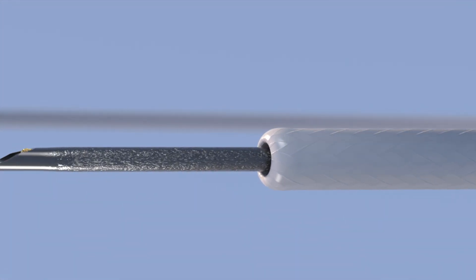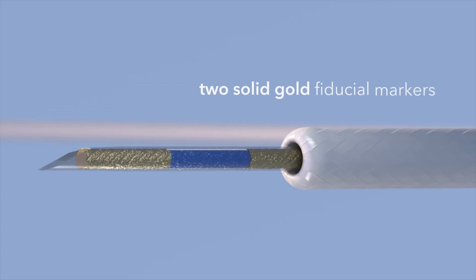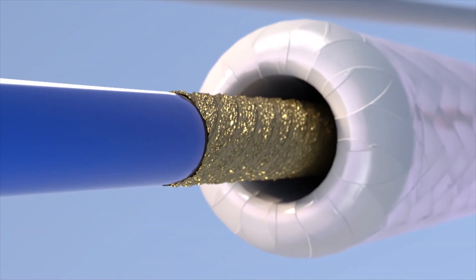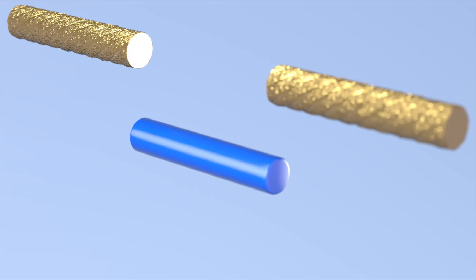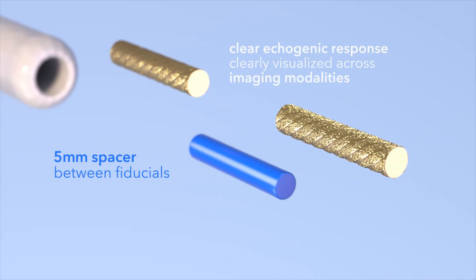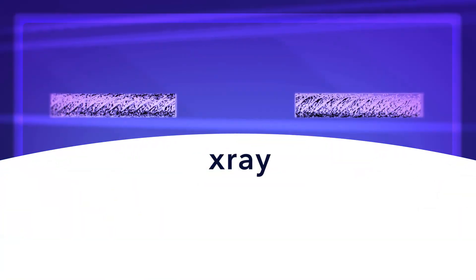The Beacon FNF Needle is preloaded with two solid gold fiducial markers, which eliminates the need for manual fiducial loading. Each fiducial marker generates a clear echogenic response that is clearly visualized across imaging modalities like CT, X-ray, and KV.